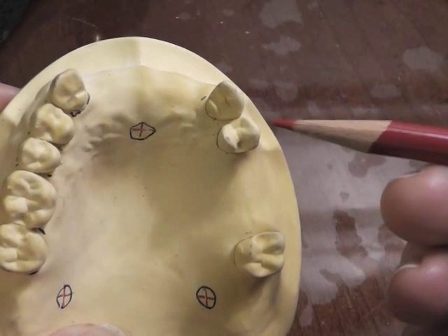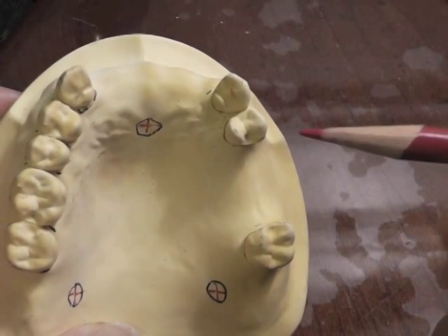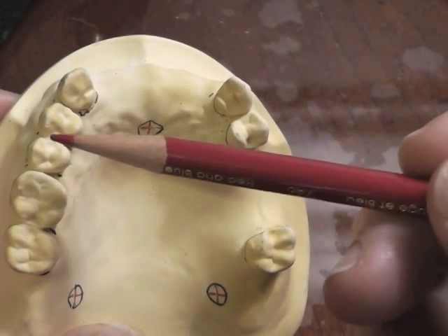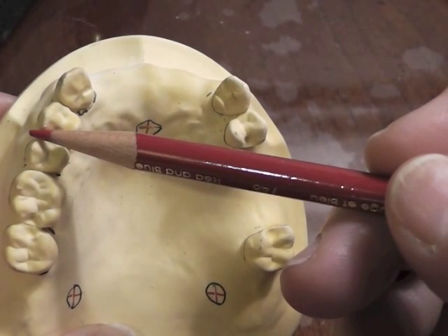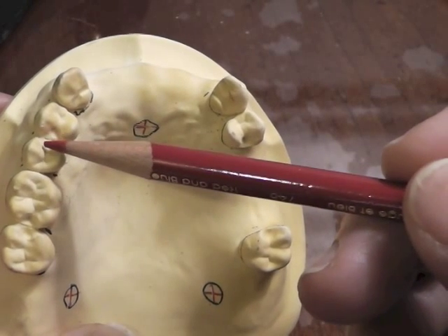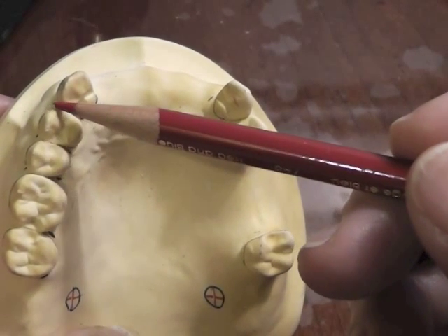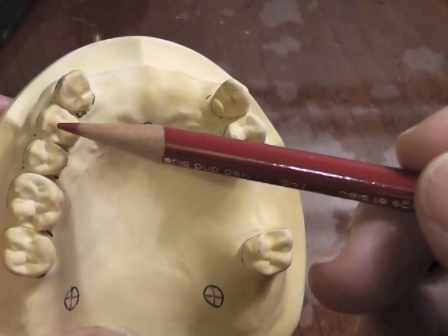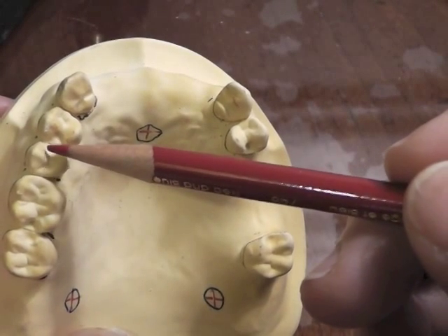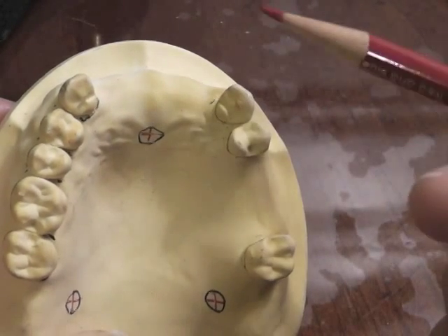We can use other clasping — sometimes we might use an I-bar or something like that for aesthetics — but the choice is usually the cast circumferential. When we bring this arm through this area, we also have to remember that we will be doing an embrasure rest to protect the patient from feeling like that clasp arm is wedging between the teeth when a tooth is depressed. If we have an embrasure rest, both teeth will be depressed at the same time and that arm will not feel like a toothpick being driven between the teeth.